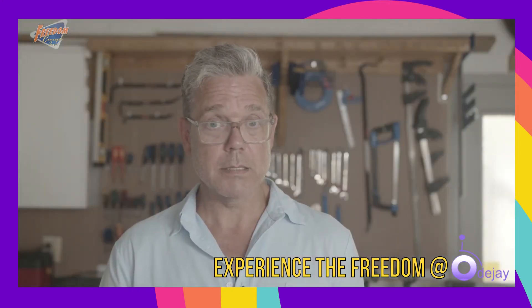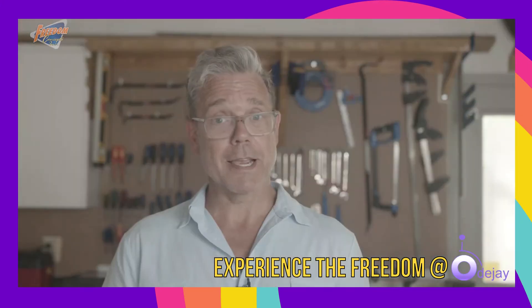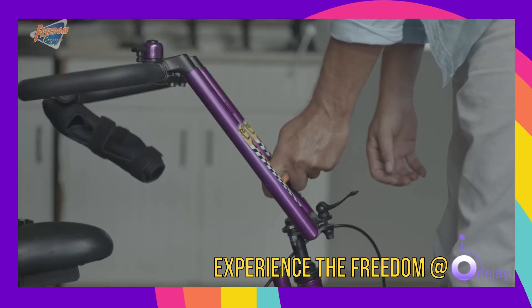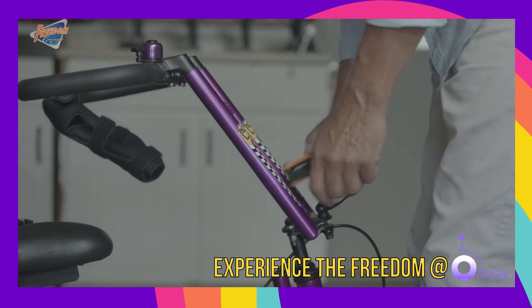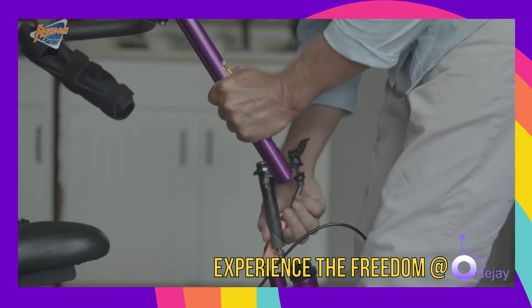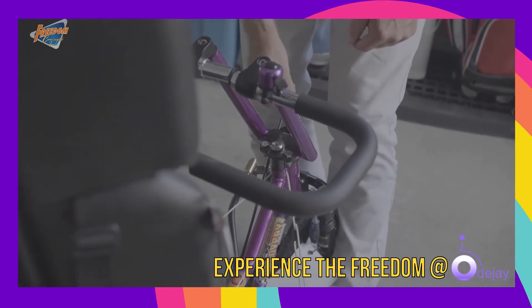Standard on all Freedom Concepts bikes is a parking brake. Make sure the parking brake is engaged when transferring riders on and off the bike. Handbrakes can be installed wherever you desire. The steering mechanism on the Discovery Series is also adjustable. Depending on whether or not the rider is able to steer on their own, you can lock or unlock the steering. To lock the handlebars, loosen the bolt at the bottom of the U-bar and lightly tap the bolt to loosen. Pull out the stem, move it into the locked position, then tighten the bolt and insert the cap. Now the steering is locked and the rider will not be able to control the direction of the bike. This feature is especially useful for new riders who might not be able to safely steer or keep their hands on the handlebars.